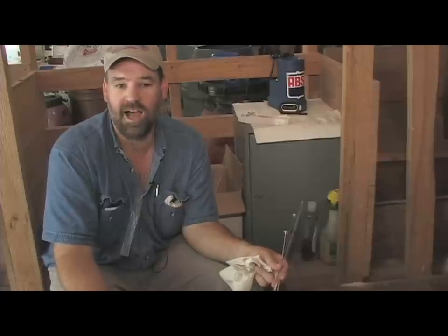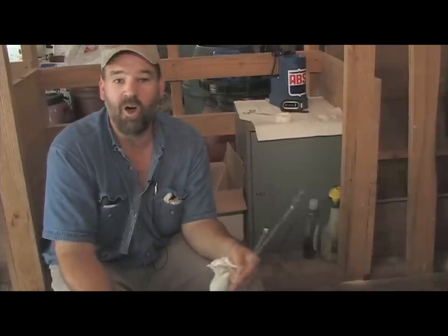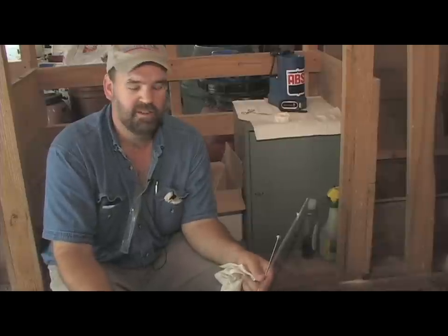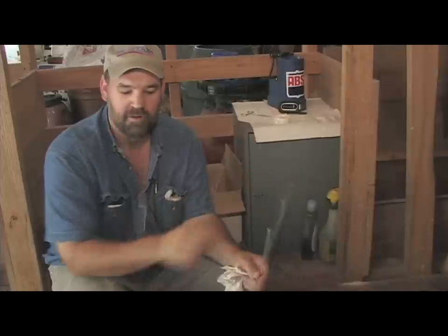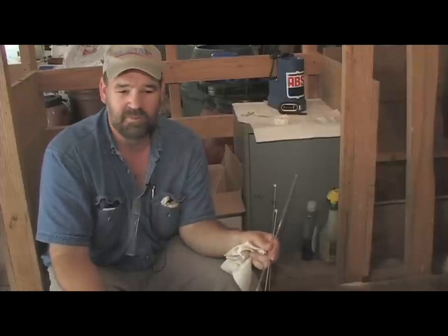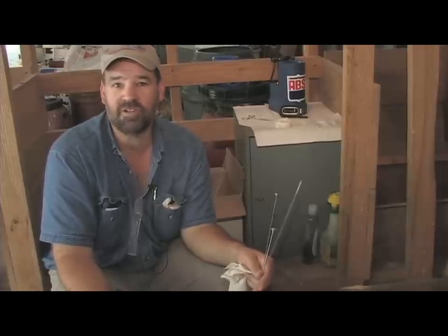Now that I looked online and on YouTube, all I found was people in South America not speaking English, and some guy talking about it but not really demonstrating it. So I hope this video helps and I hope to get somebody started and encouraged. Like me, you've never even seen the equipment — now at least you know what it looks like. The tank was around $600, the thermos about $125, the book about $25, the syringes about $35. The non-sexed semen can be as cheap as $8, and the most expensive sexed semen I bought was $30. I've got four heifers, so I think it's well worth it. Thank you very much — hope you enjoyed it.